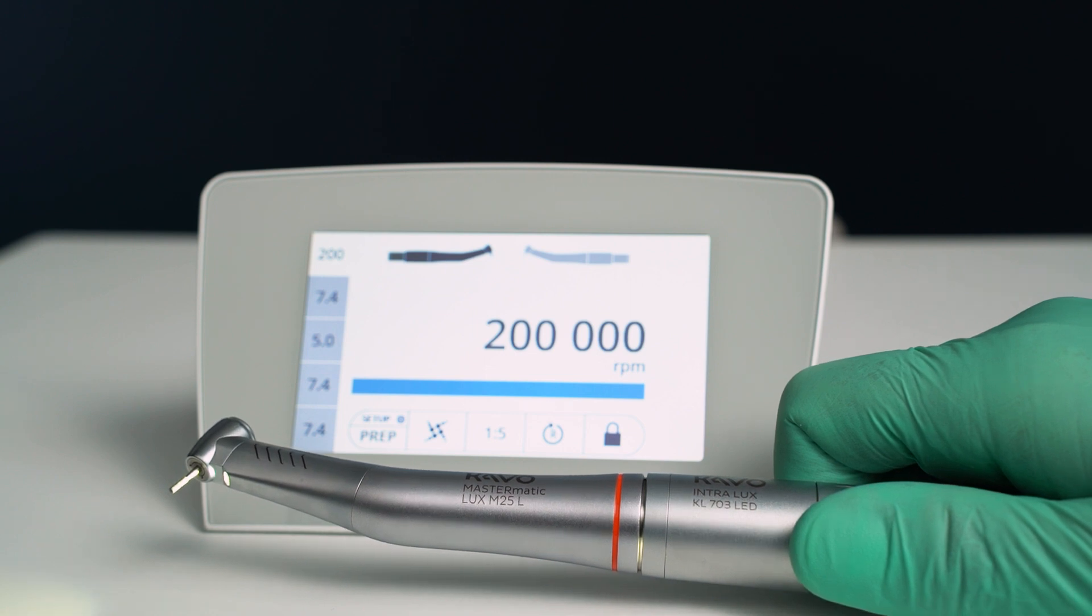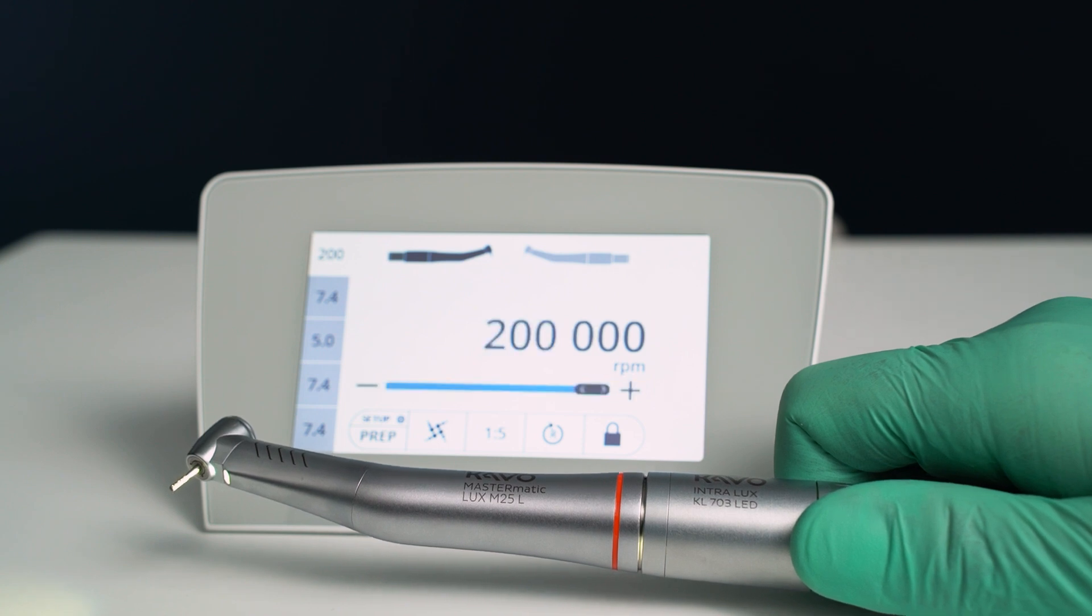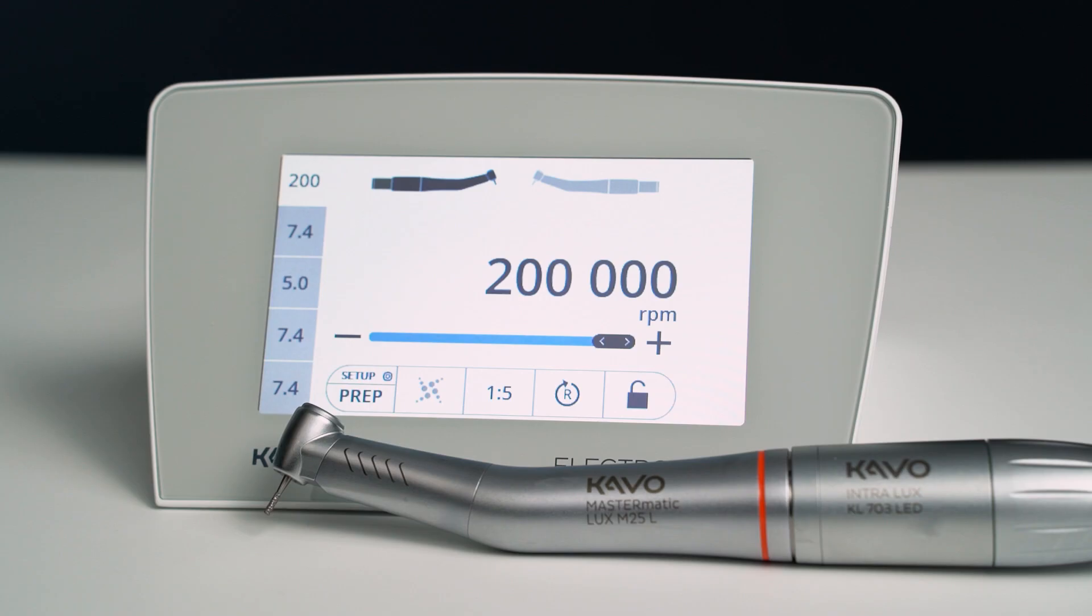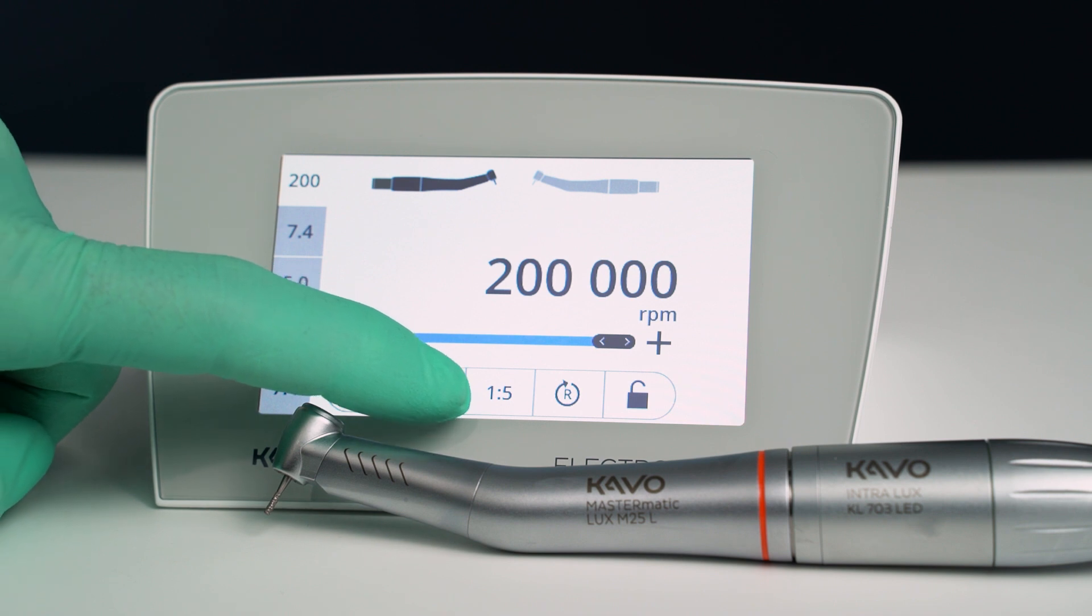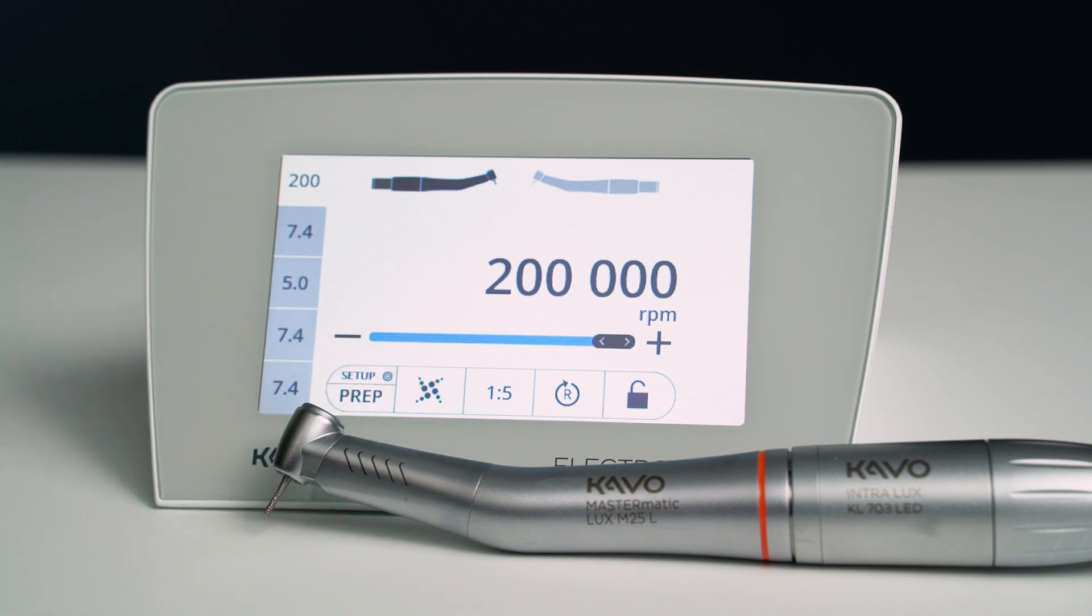If you notice, even at a max speed, I am speaking with a normal volume. These hand pieces are extremely quiet, which is something you, your patients and your staff will very much appreciate. Safe drive technology in the Electromatic Premium also helps ensure that while operating these contra-angles at such high speed, the hand piece will not overheat while in the patient's mouth, preventing risk of burns or other harm coming to the patient.